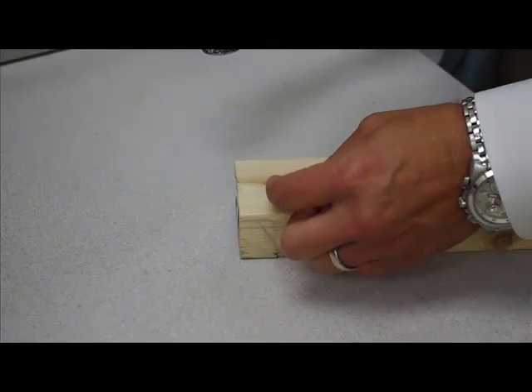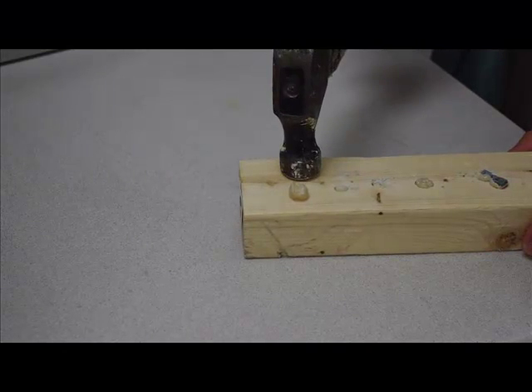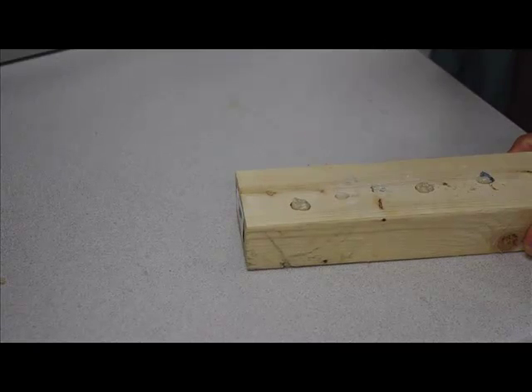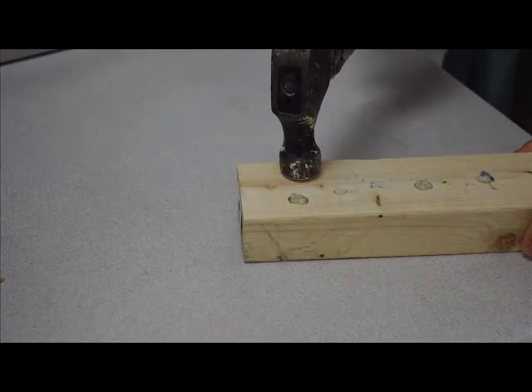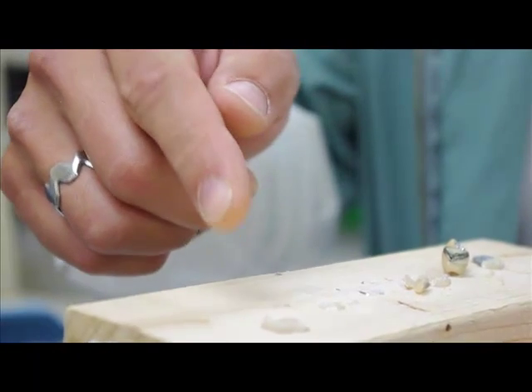Let's try our all zirconia TLZ crown. Can't break it folks. And we understand this isn't the most scientific of all studies, but I think the results are very conclusive.